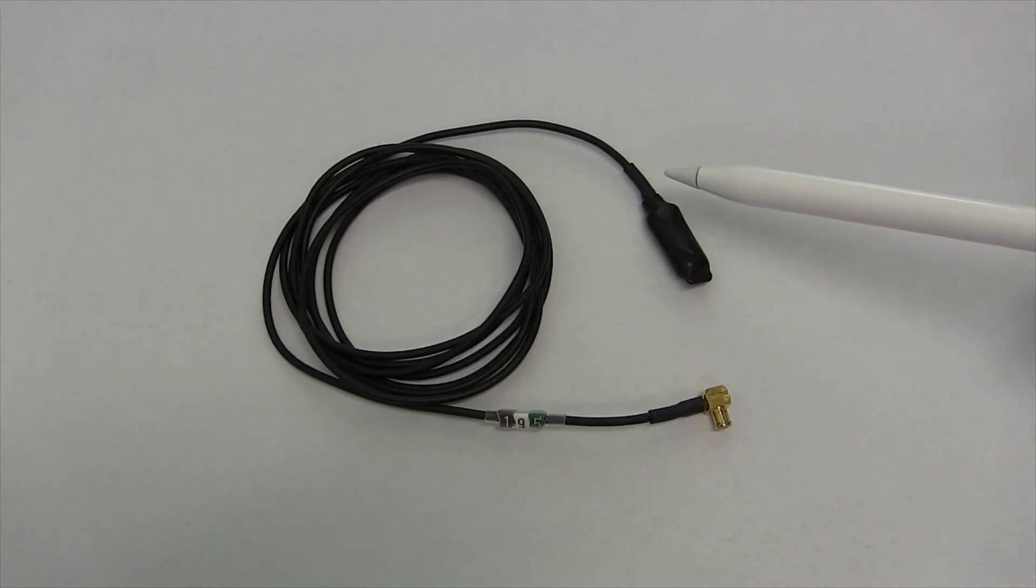Since this one has a black end instead of being red, I can tell this is a D1 detector. Also, on the detector face, to show the front end where the silicon detector or the diode is located, you'll see a small imprinted pattern that lets us know that's the face from a calibration standpoint or from an orientation standpoint.